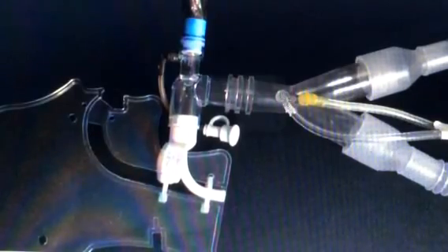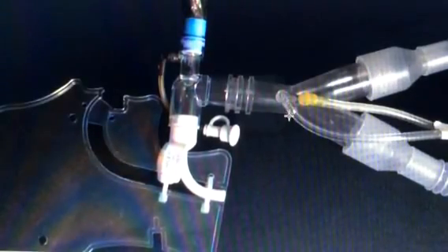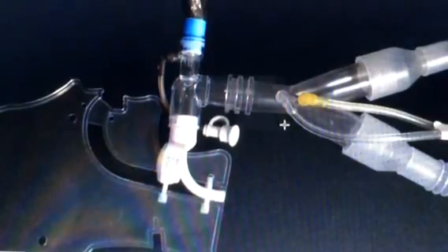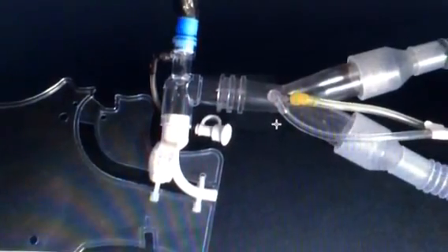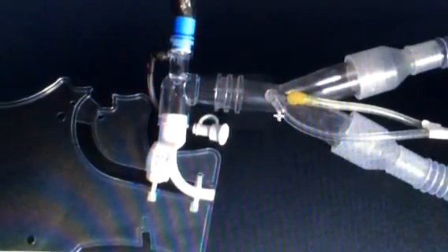The Sense Tubes on the LTV ventilator are these two small little tubes. They measure pressure. They measure the pressure when they give a breath. If it's a pressure-type breath, they measure the pressure in case the tubing gets disconnected.